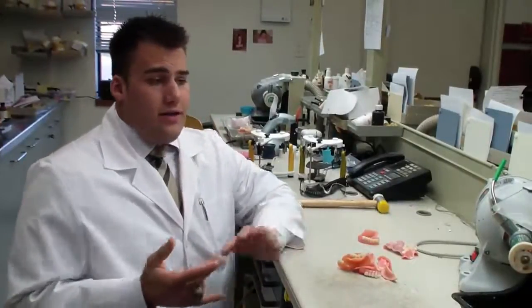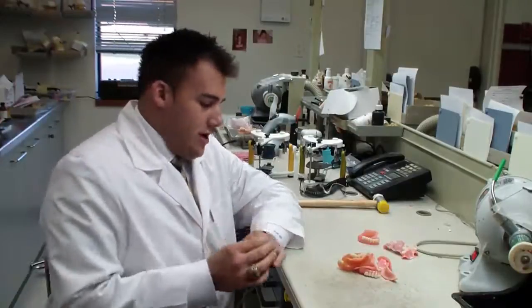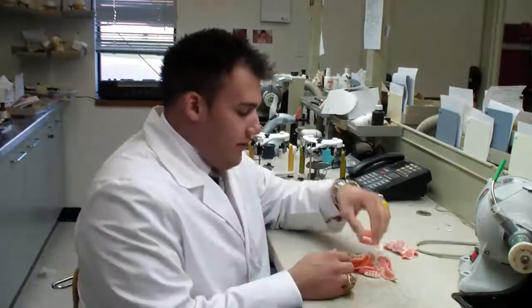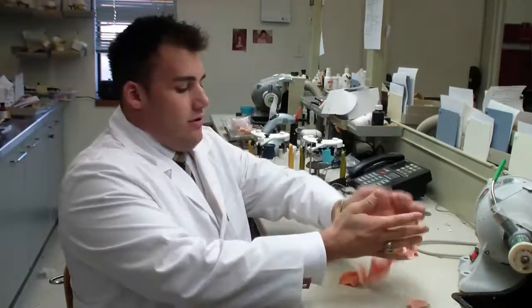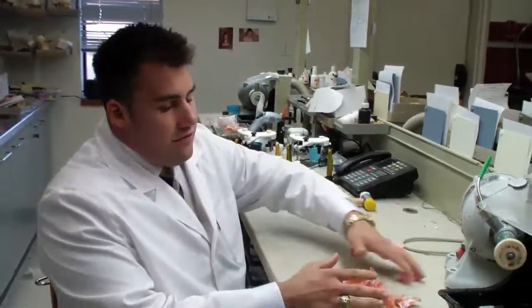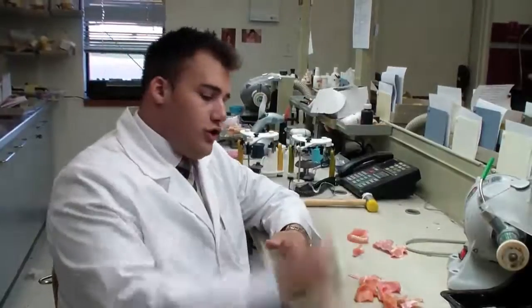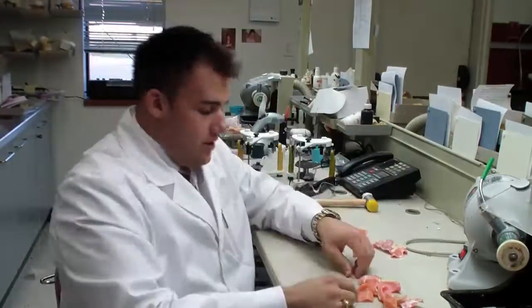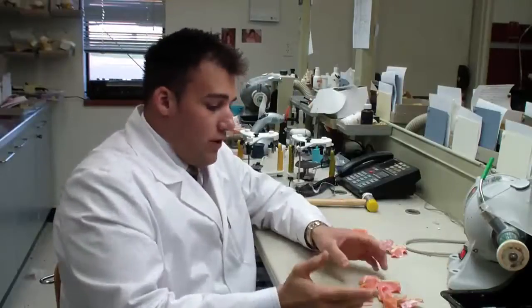So, having done these unscientific tests, what can we really draw from here? Well, let's start with this pile of regular press-packed dentures. If you notice in the video, right off the bat, one shot, they just fractured and displaced in the air. So we know that really, it's not as strong as a cast mesh or a Fiber Force Reinforced Denture.